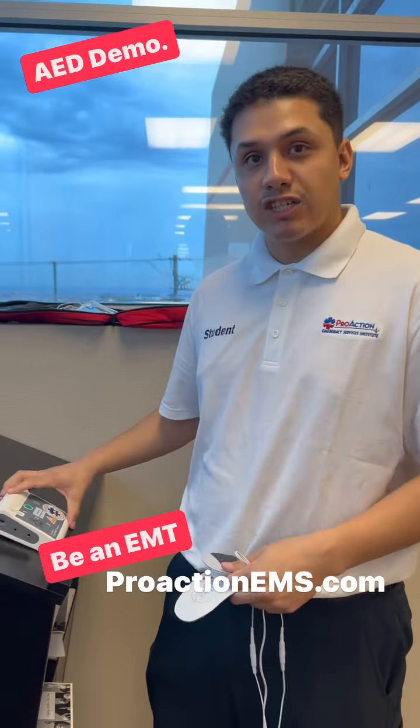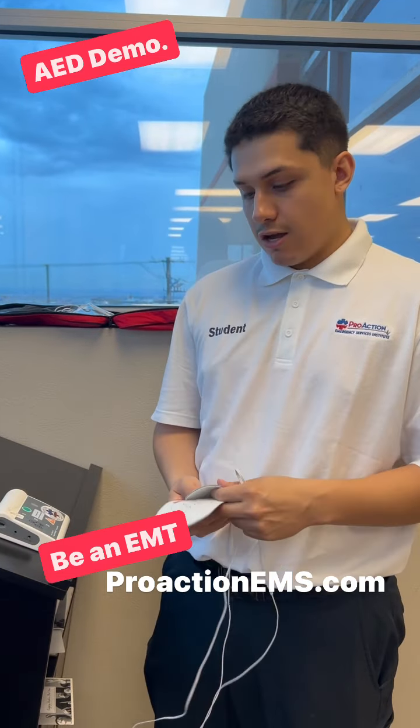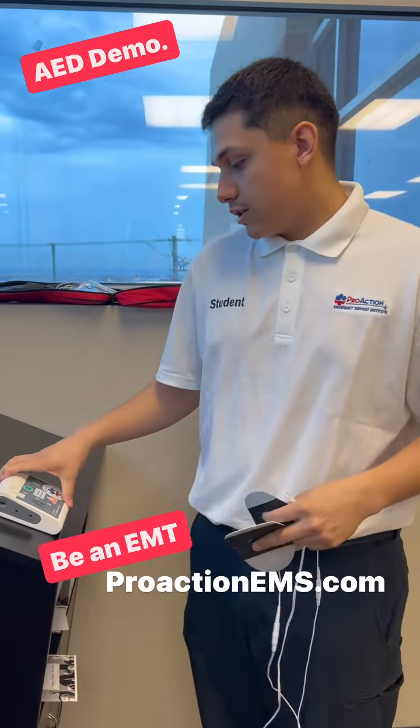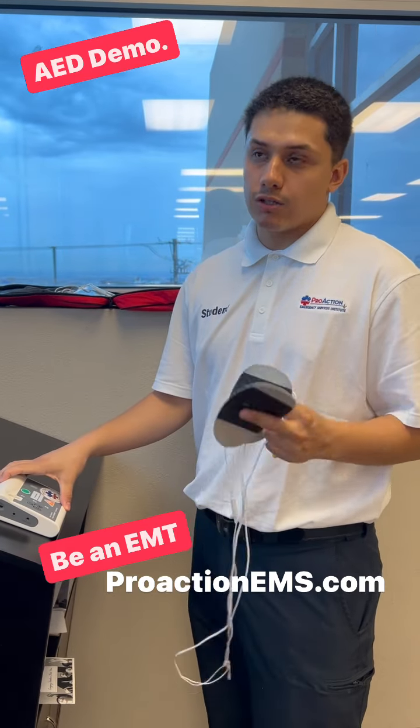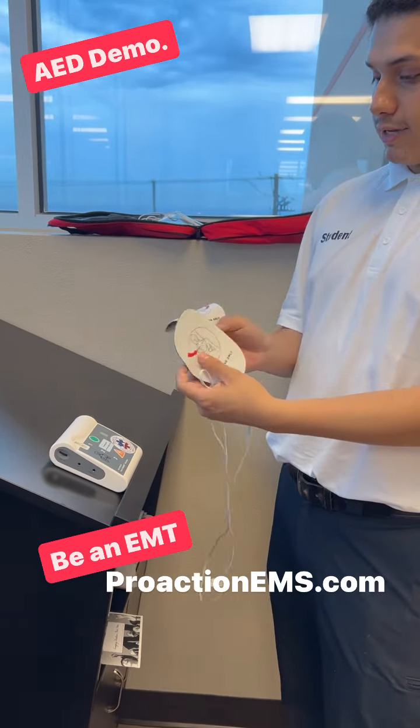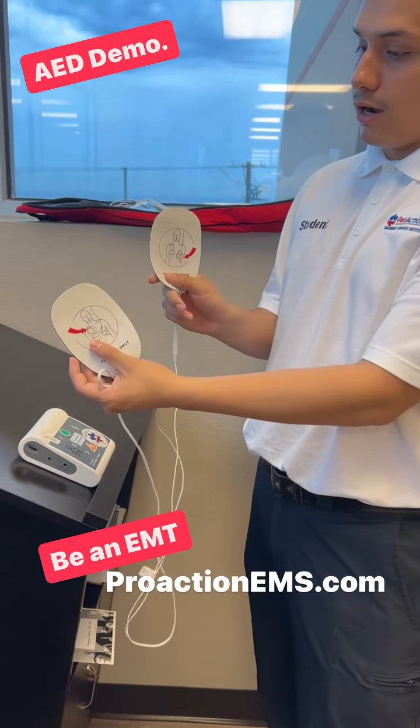This is called an automatic external defibrillator, also known as the AED. So here are your adult pads. This delivers a shock to bring back the rhythm of cardiac arrest or during CPR processes. There are different types of sticky pads. They're pediatric and these are adults.